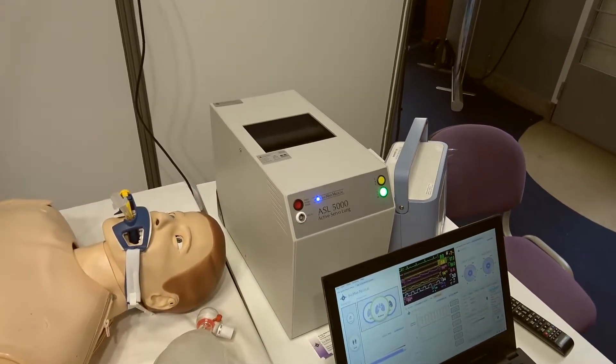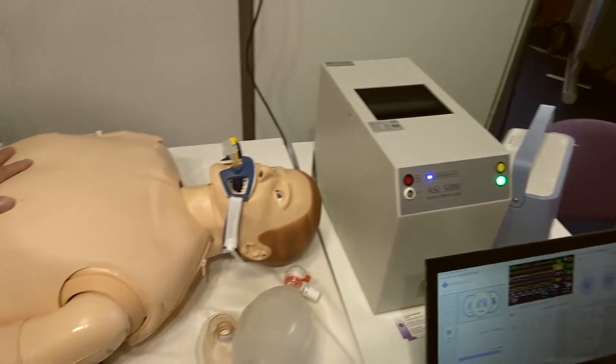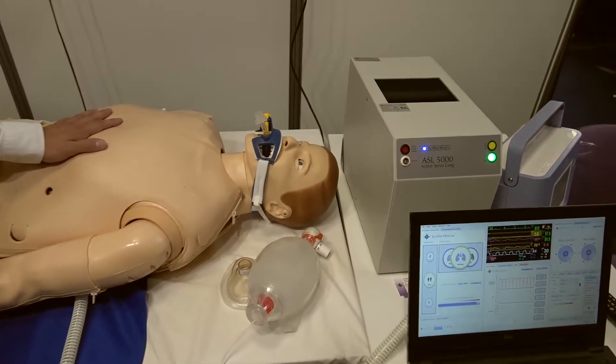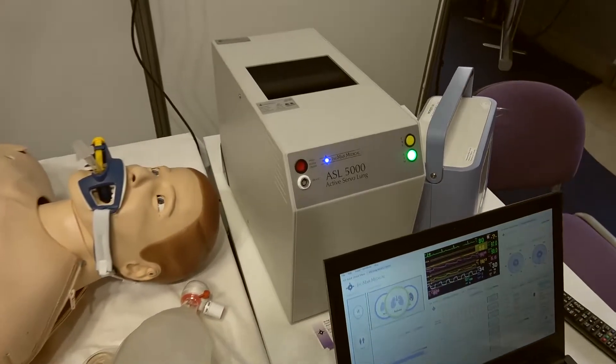This solution is currently compatible with the SimMan 3G, SimMan Essential, SimMan Essential Bleeding, and SimMan 3G Trauma.